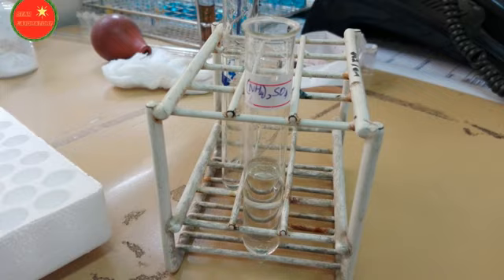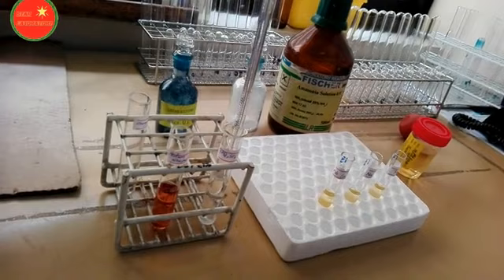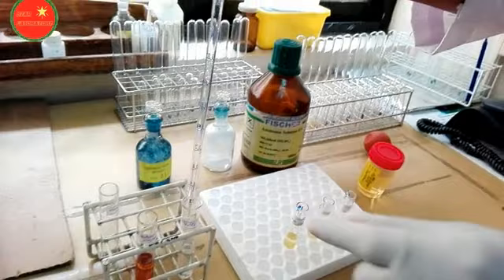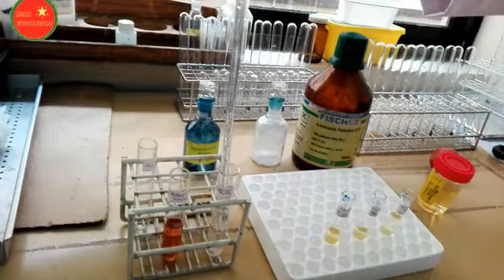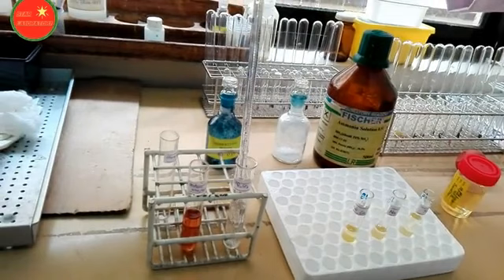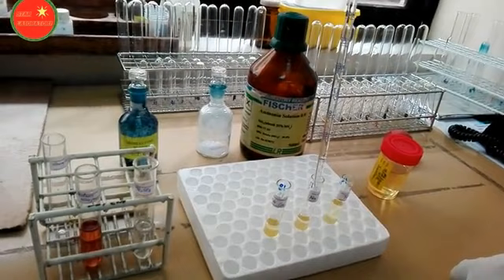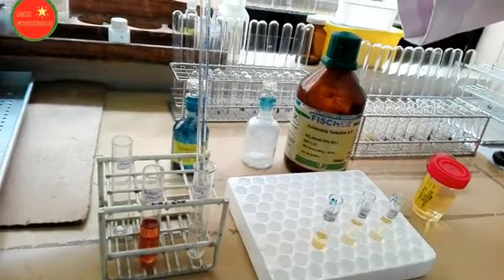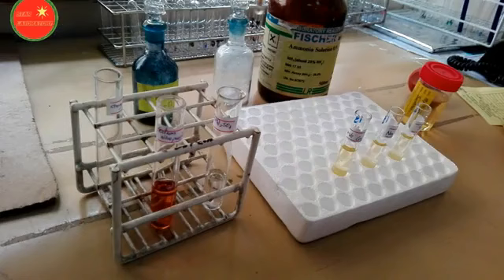After mixing well, add 5 ml of saturated ammonium sulfate solution into each of the related test tubes — into the test sample, the negative control, and the positive control.